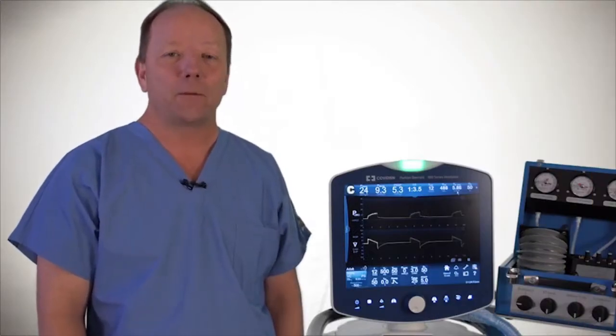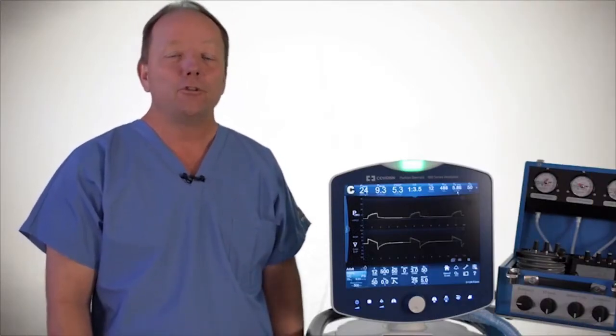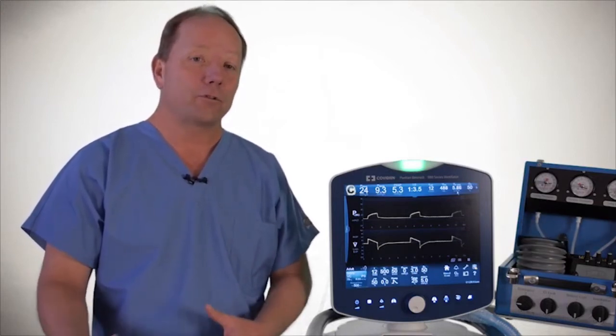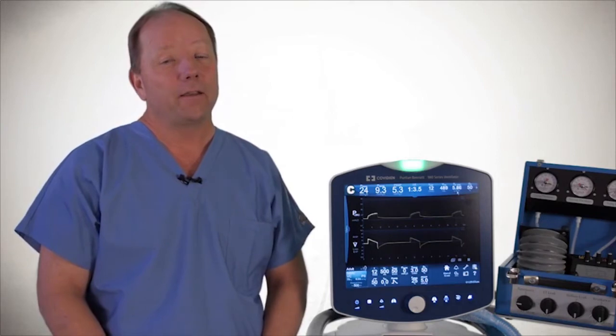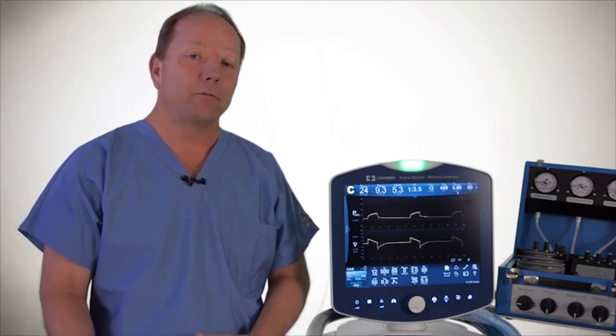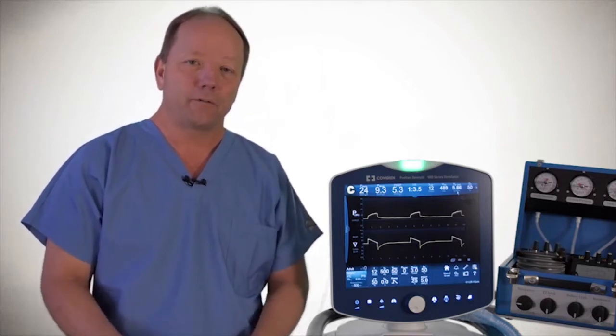The next software I want to talk about is tube compensation software on the Puritan Bennett 980 ventilator. Tube compensation software is a breath type that tries to compensate for artificial airways, whether it be an endotracheal tube or tracheostomy tube. It does this by looking at the size and theoretical length of the endotracheal tube and using a lookup table of flow to determine how much pressure support it would take to overcome the imposed work from the artificial airway.